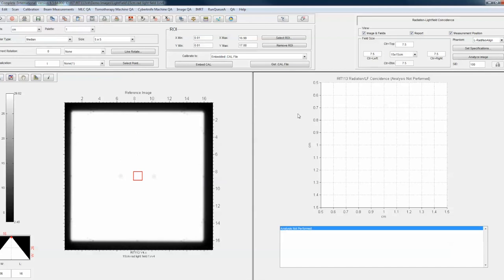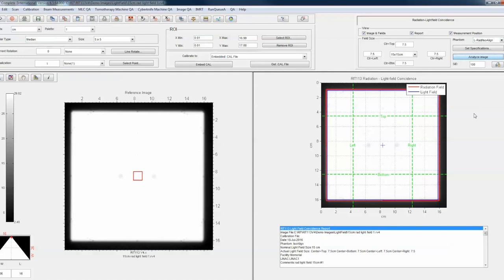You would put this on the scribe lines for our LRAD phantom or some of the marks on other phantoms like the iso-align. If you're doing this on your EPID and you're not at exactly 100 SID, you can adjust here and the software will scale to the SID you're using. Now that we have the center marked, we click Analyze Image, and the software will put a mark where it's found the centroid. Even if the region of interest is not perfectly centered, it will find the mark within there — provided there is only one mark in that area. Multiple marks might confuse the software.